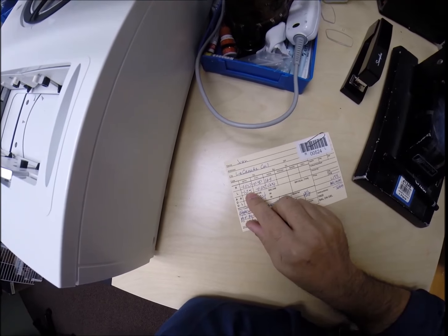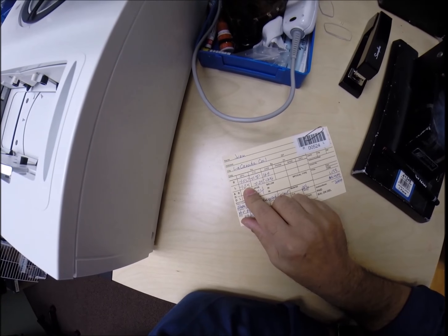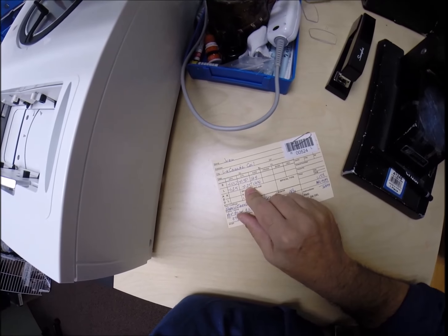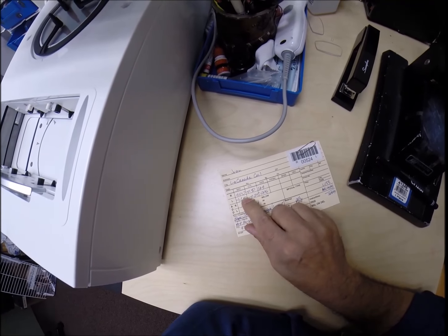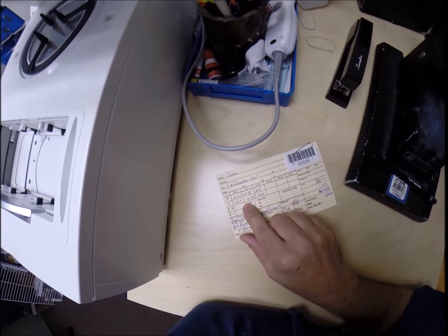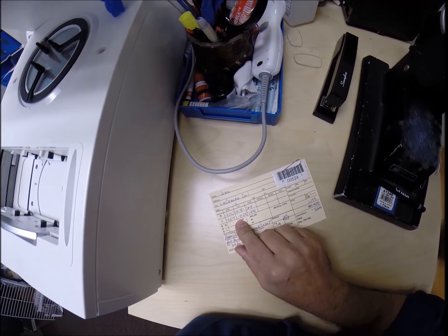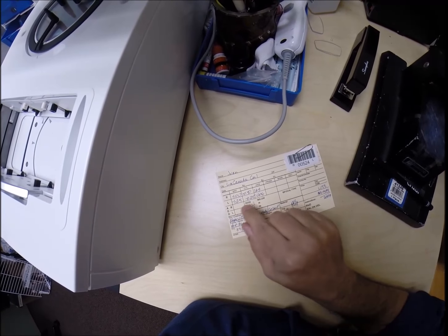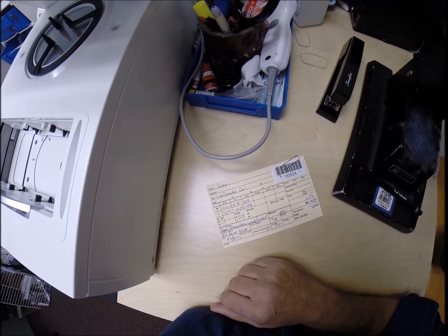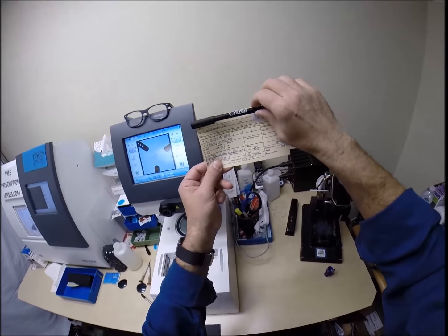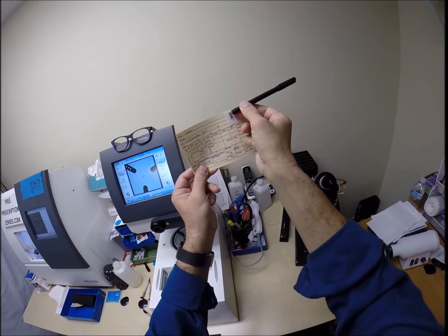Let's go ahead and check for your astigmatism. And we end up at minus 150, exactly halfway between 1 and 2. Remember high school algebra, you add two like signs together? Yeah, no one does. So, let's use today's term. Someone borrowed a dollar from you, and then they borrowed another 50 cents. They would owe you $1.50. That's where we're at, 150 in the red. Now, your left eye, you need five steps of spherical correction to make everything in the correct size.